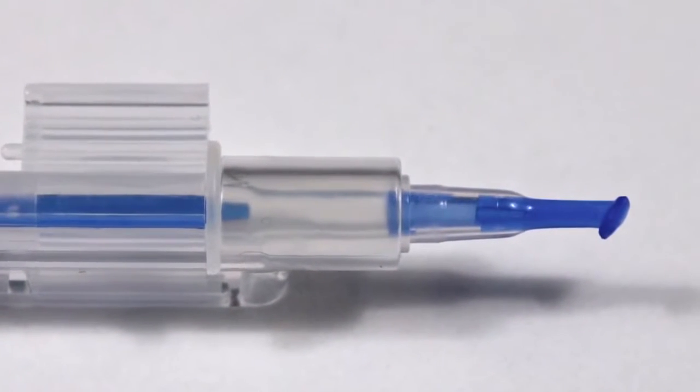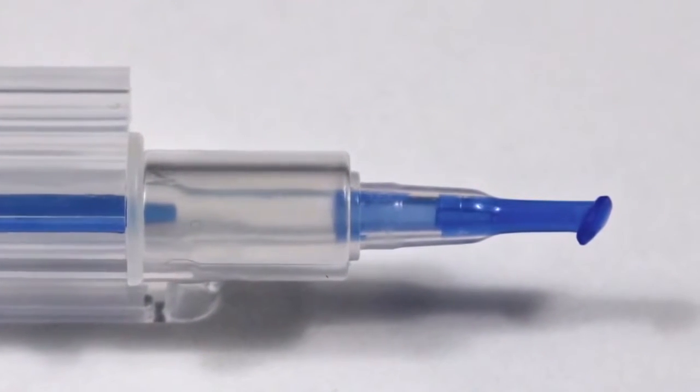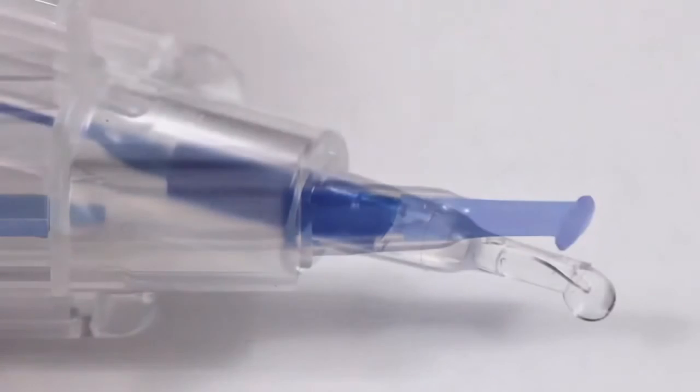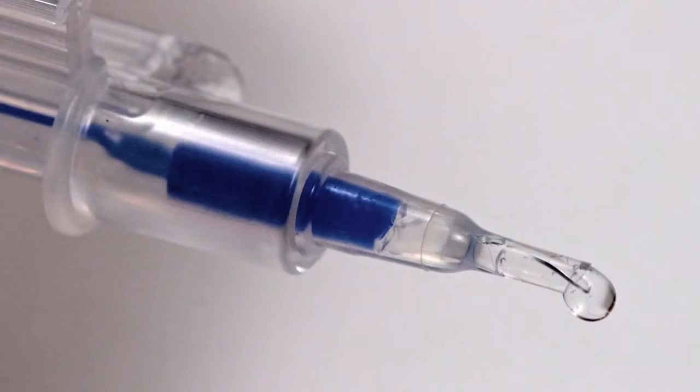Avoid extending the plunger tip past the cartridge tip in order to prevent mushrooming. If you notice that the leading haptic is straight as the lens is advancing in the tip, then the lens is not correctly positioned.